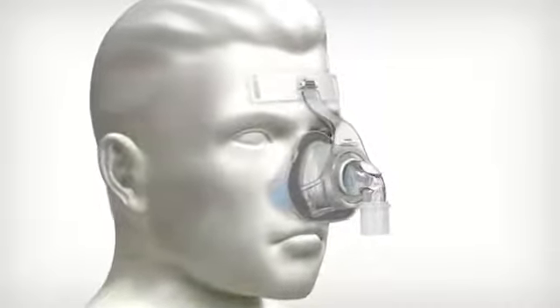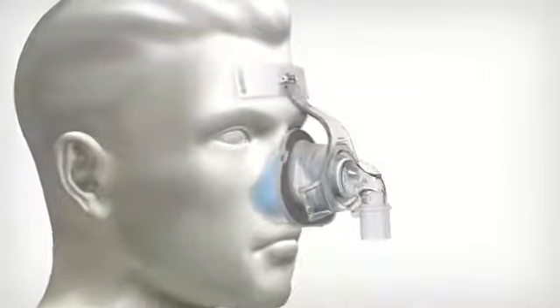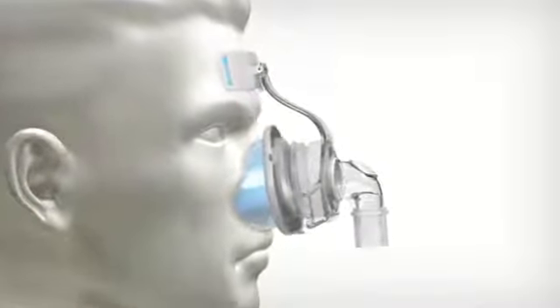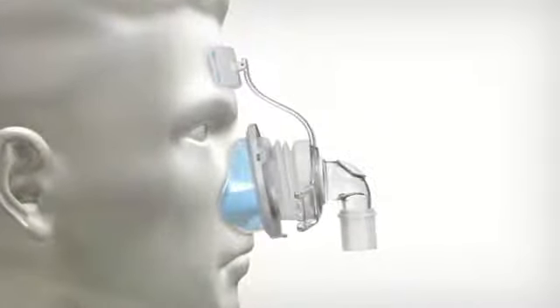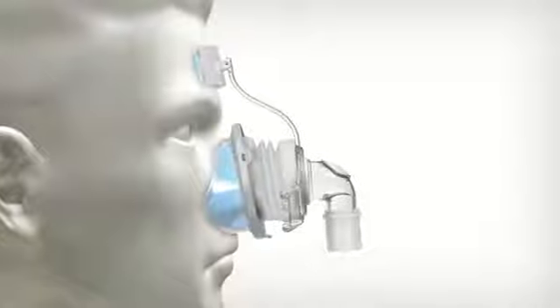AutoSeal Technology was developed to help create a more complete seal. It's designed to give patients a higher degree of comfort, stability, and freedom of movement with minimal adjustments.